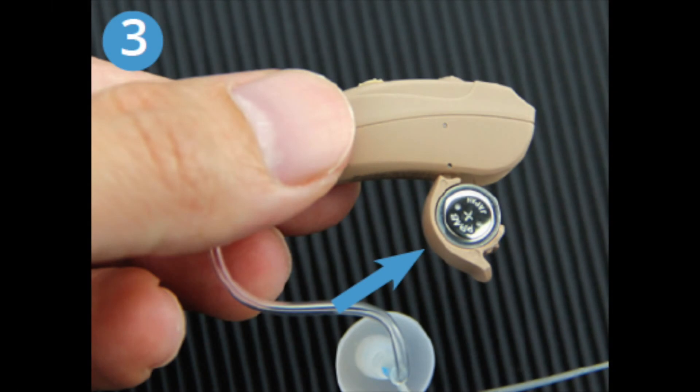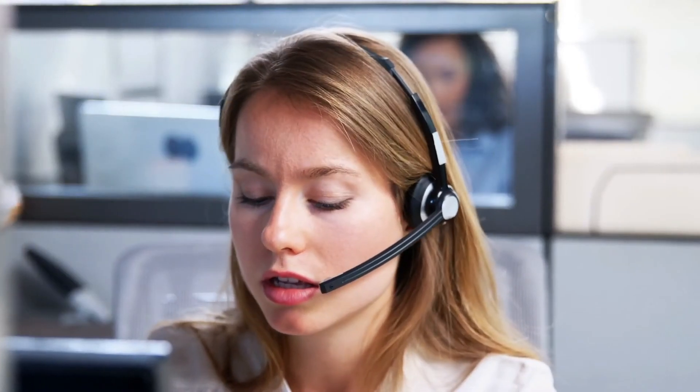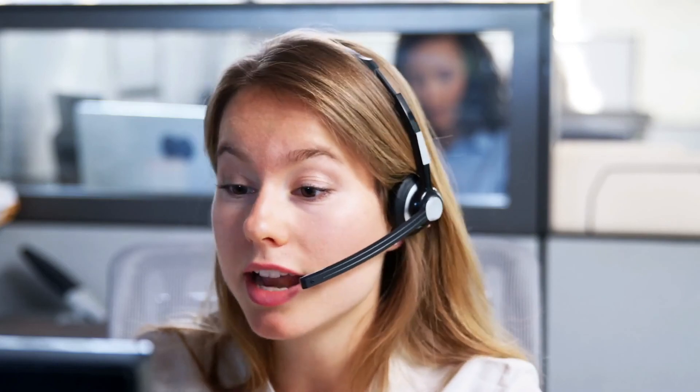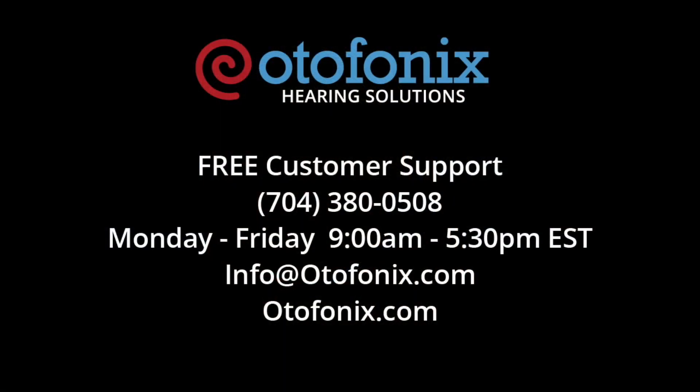Step 3: Open fully to replace the battery. Please do not hesitate to reach out to our U.S.-based 5-star customer care team at 704-380-0508 or email us at info@otofonix.com.